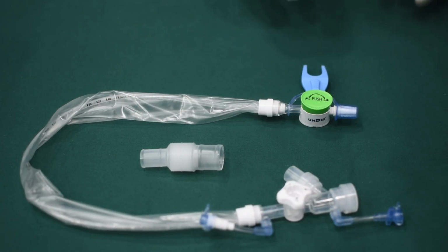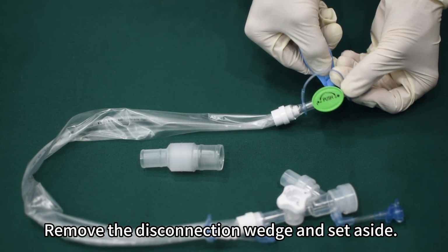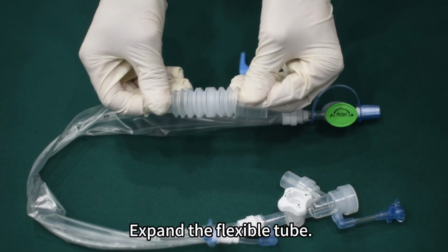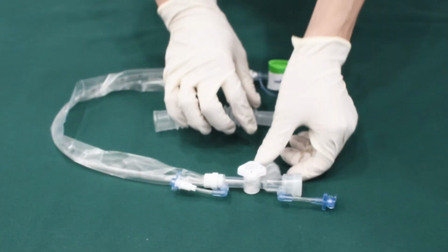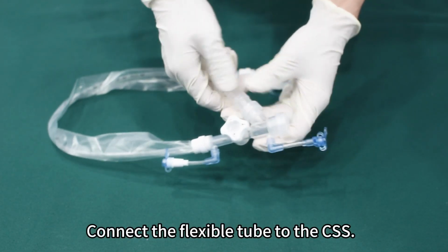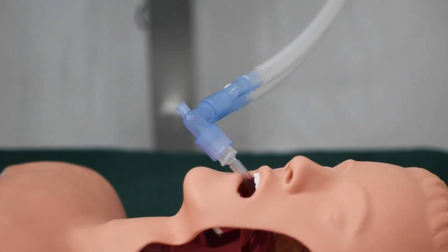Instruction for use: remove the disconnection wedge and set aside. Expand the flexible tube. Connect the flexible tube to the CSS. Connect the CSS with the patient side.